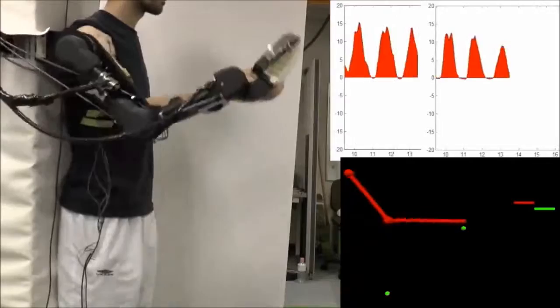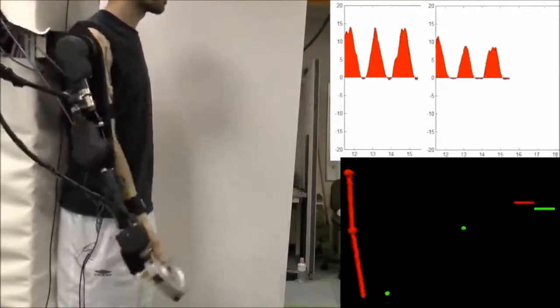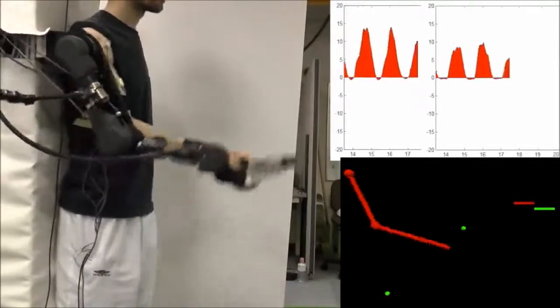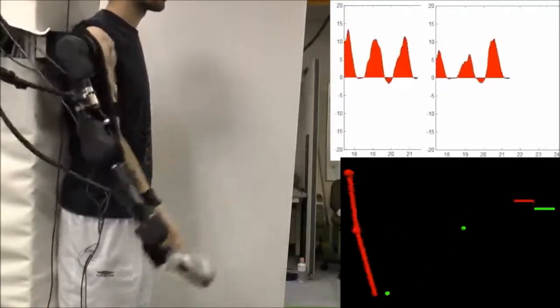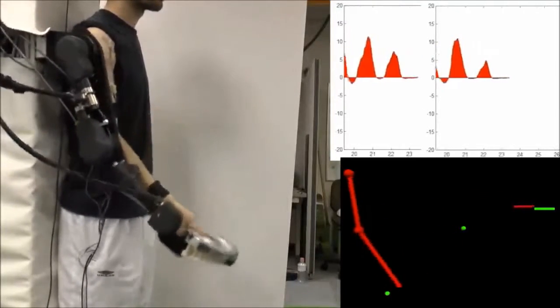The experiment was again divided into three stages. Each stage had a different reference of the hand motion. The subject was instructed to keep a constant frequency throughout the experiment.